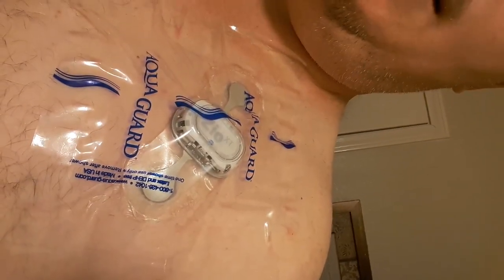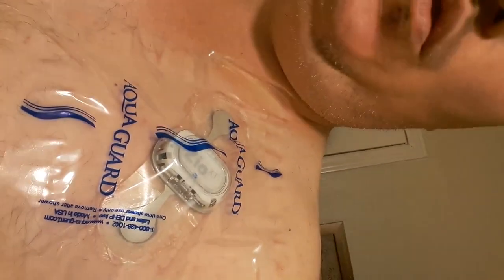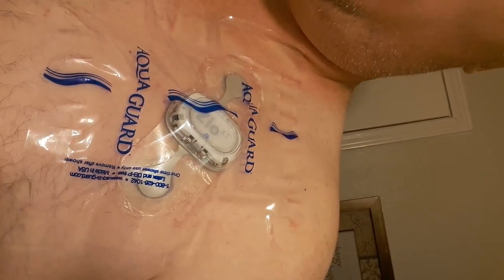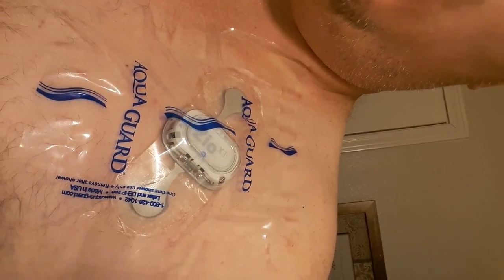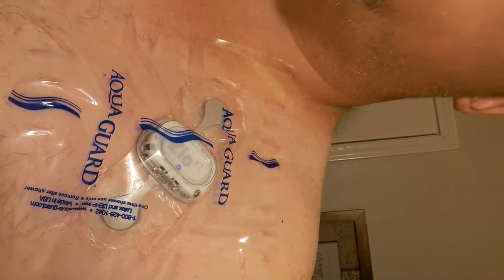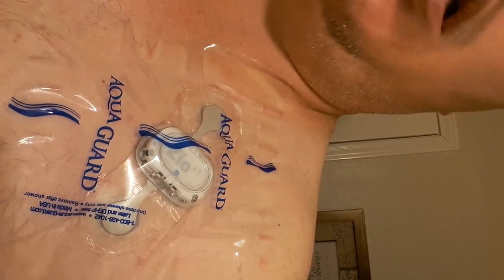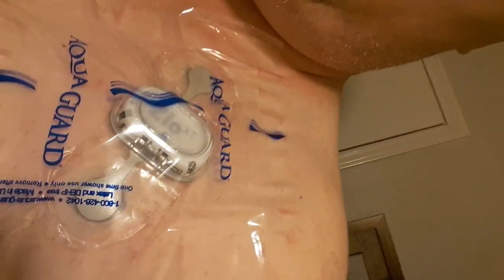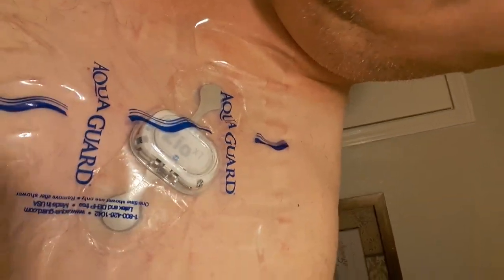I had to put super glue to keep this thing on because I wore it for less than a day and the whole thing just plopped right off. I wasn't doing any super major crazy work or anything like that and the adhesive came right off. So I super glued it. I found that you can take it off once you're done with a little bit of soap and water and then acetone, which you can get at the home improvement store or it's also nail polish remover. My wife also picked me up AquaGuard, which goes over it so you can take a shower and not have to worry about it getting submerged or soaked.